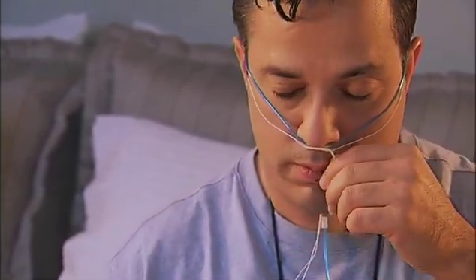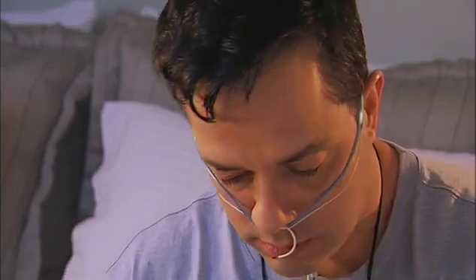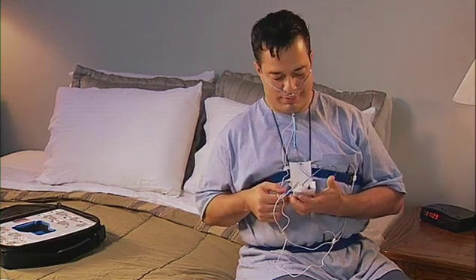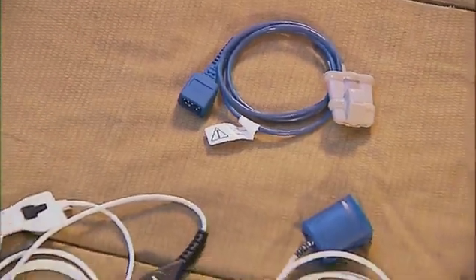Position the thermal airflow sensor on your lip and below your nose. Place the wires from the sensor over your ears and secure it comfortably under your chin. Bend and position the wire so it is above your lip but not in your mouth. Apply a piece of medical tape to your cheeks over the wire to help keep them in place while you sleep. Plug the connector into the port located near the purple color coding.